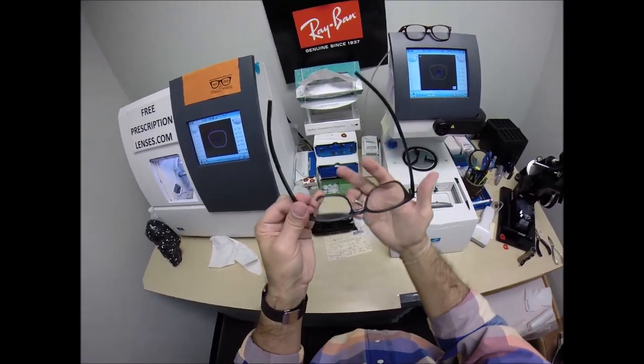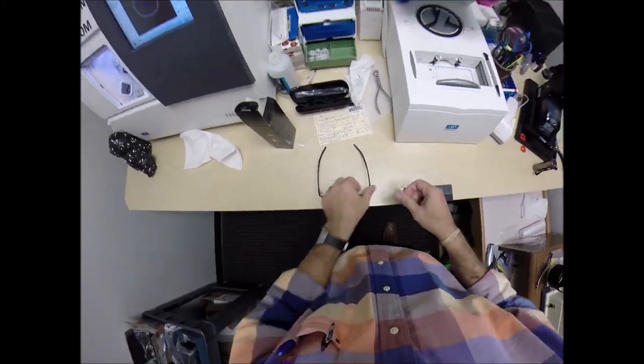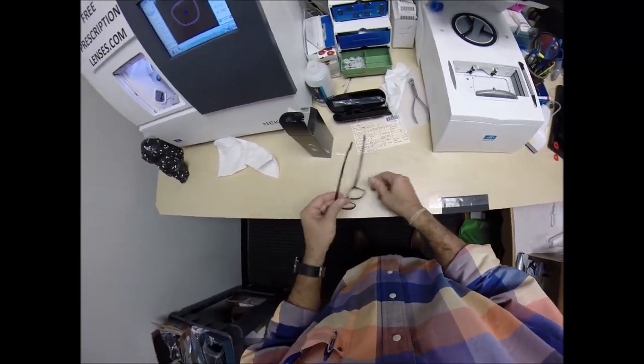But I'm going to get these in standard alignment first, also known as a three-point stance. So three points are one, two, and the bottom of the frame being three. I set it on the counter and press down. There is no wobble. And I flip it over, press down. There is no wobble.